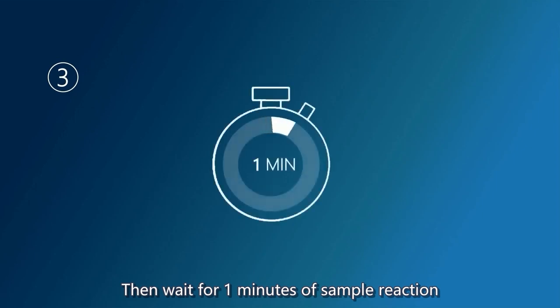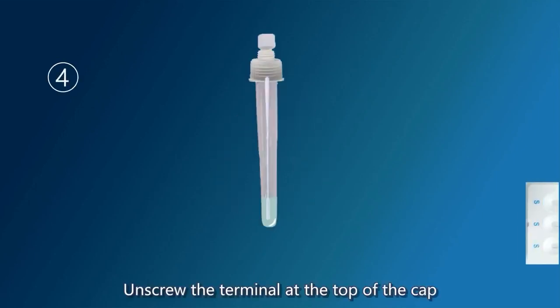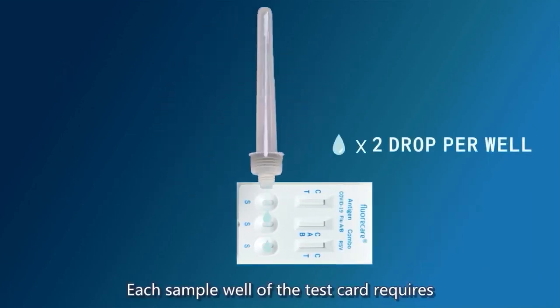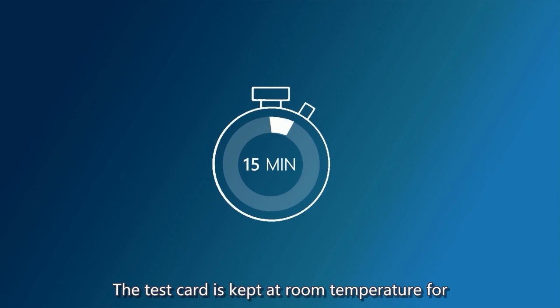Unscrew the terminal at the top of the cap. Each sample well of the test card requires two drops (about 60 microliters) of the treated sample solution. The test card is kept at room temperature for 15 minutes to observe the test results, but observation results over 20 minutes are invalid.